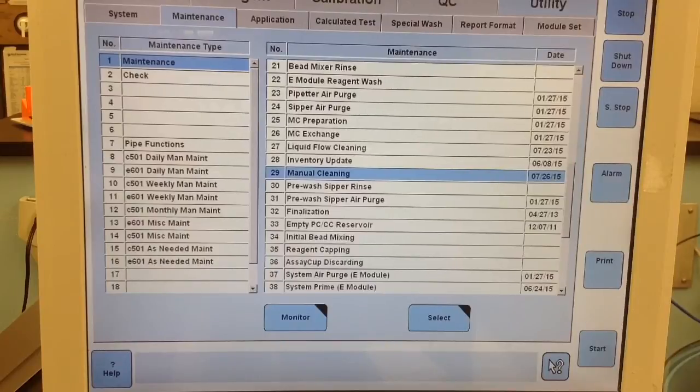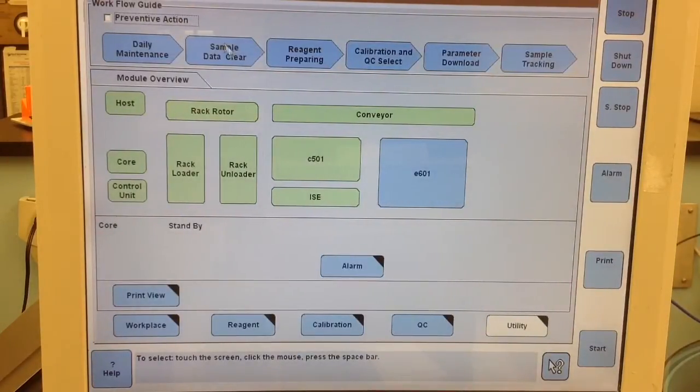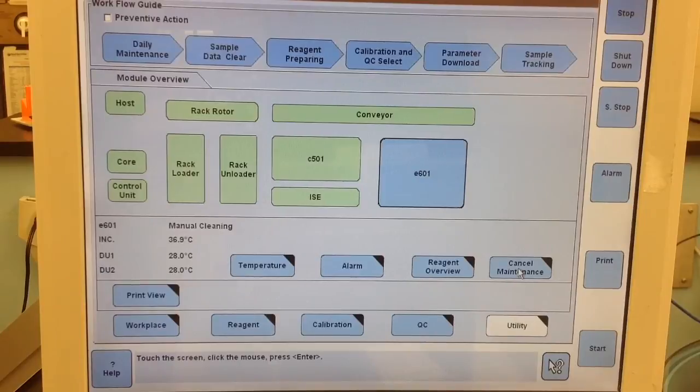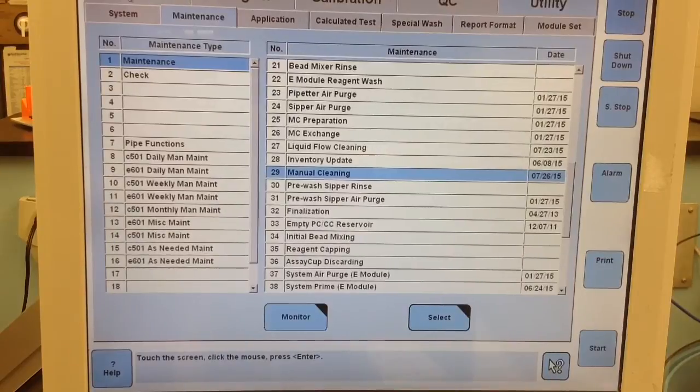Also I'm not going to show it at the very end but when you're done doing your maintenance you can go ahead and either cancel maintenance or you can at the top right just hit stop and stop the system, and it helps to do a reset after this just to get everything back in order.